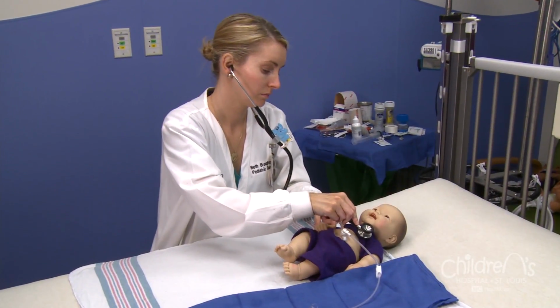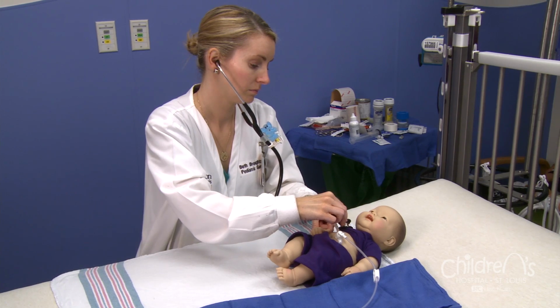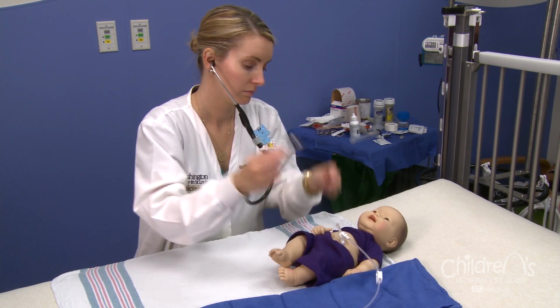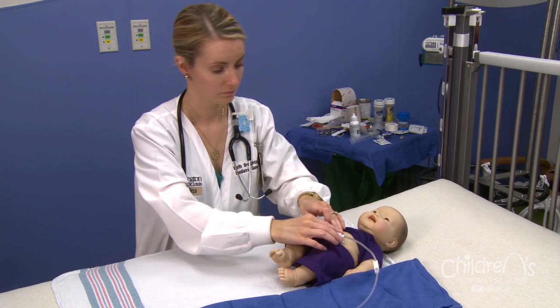Your child will be allowed to have some medications through the button or by mouth in those first 24 hours. After surgery, the surgical area may be tender for several days. It can also be normal to see drainage around the button. The nurse will check your child frequently for pain and discomfort after surgery and will give pain medications as ordered by the surgeon. The nurse will also check for heavy drainage around the button and will monitor the amount of fluid draining from your child's stomach. The container will be disconnected from the button once the surgical team determines your child is ready.